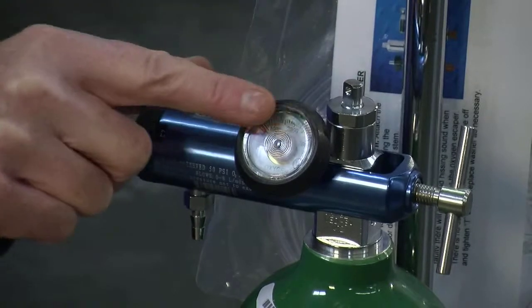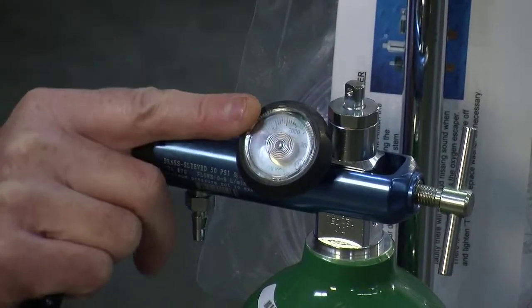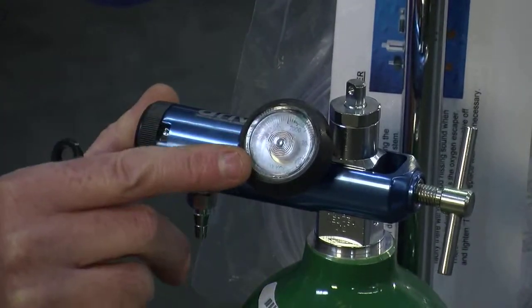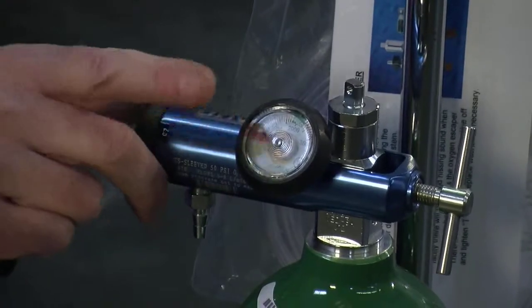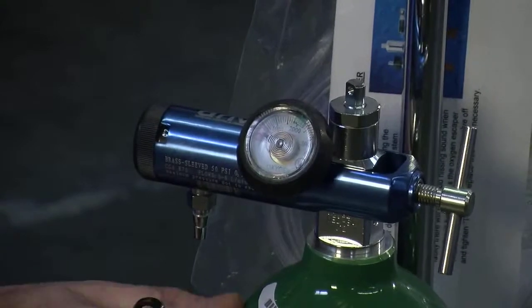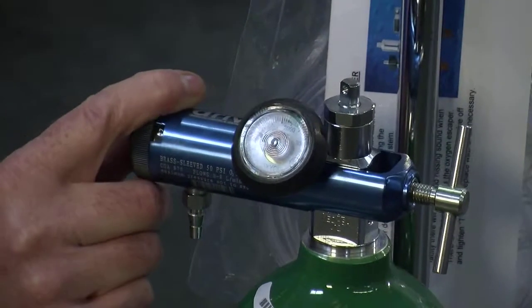There are increments of 2,000; 1,500 which would be three-quarters full; 1,000 which is half full. There's also a zone on the contents gauge that is red, and that starts at 500 — about one-quarter of the cylinder remains when the needle is on 500.